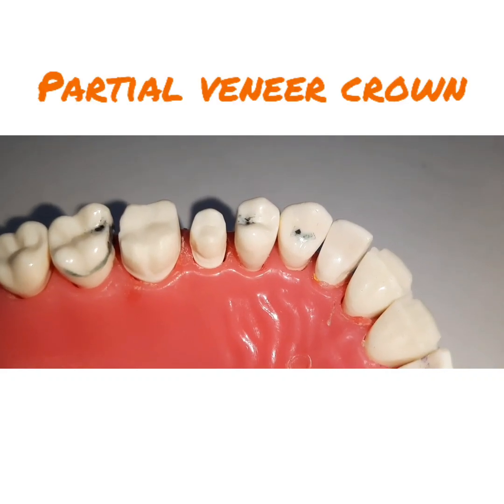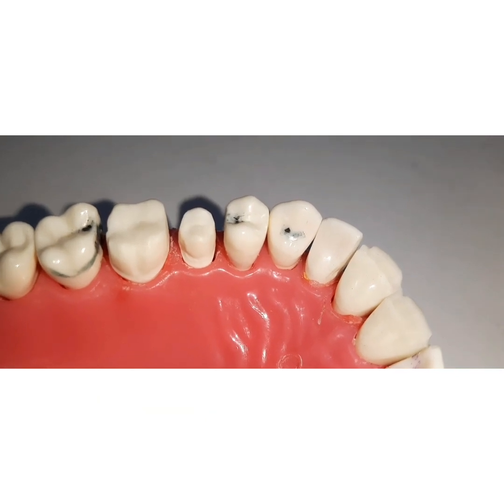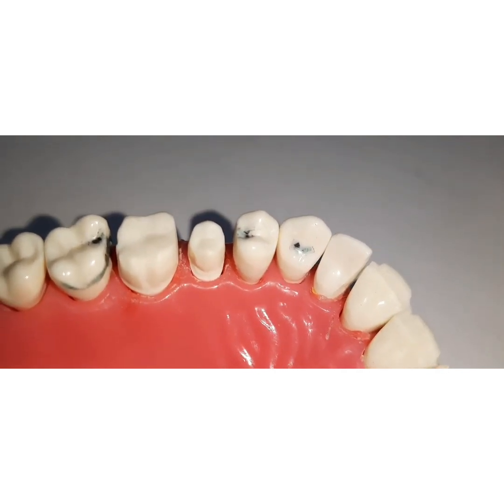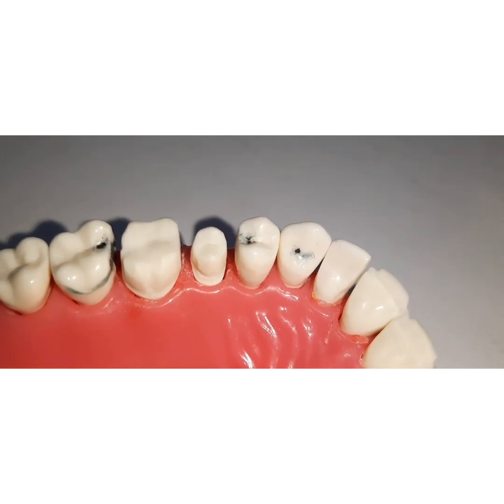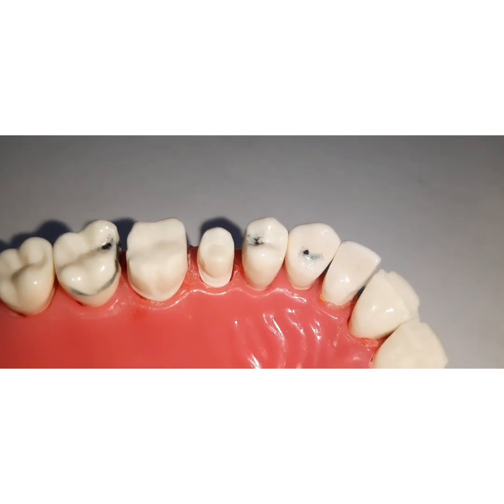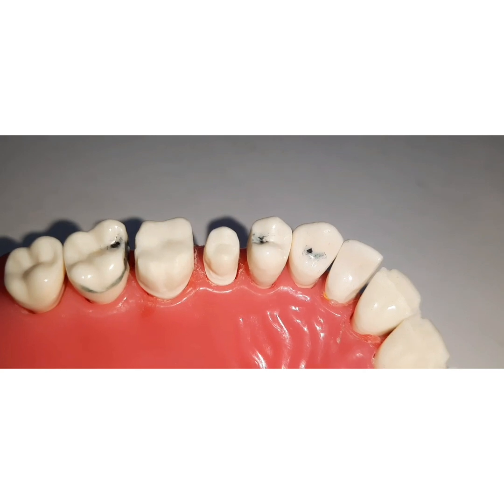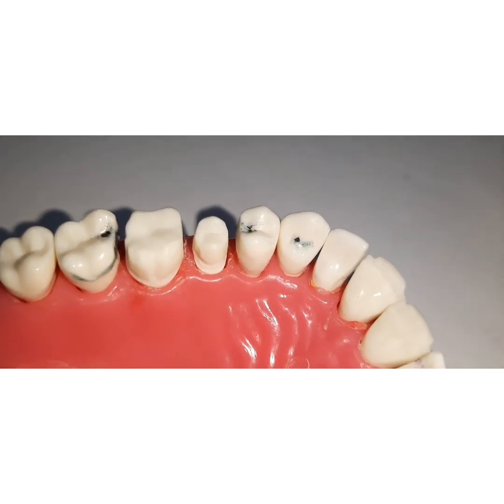Hello friends, I am Dr. Vijay Prakash and today I will be talking to you about partial veneer crown preparation. Partial veneer crown preparation means, as the name suggests, that the tooth is partially prepared and you are preserving the tooth. By partially preparing the tooth, you are preserving at least one surface. This is a type of preparation in which at least one surface is left intact, and the rest of the surfaces are prepared to accept the partial veneer crown.